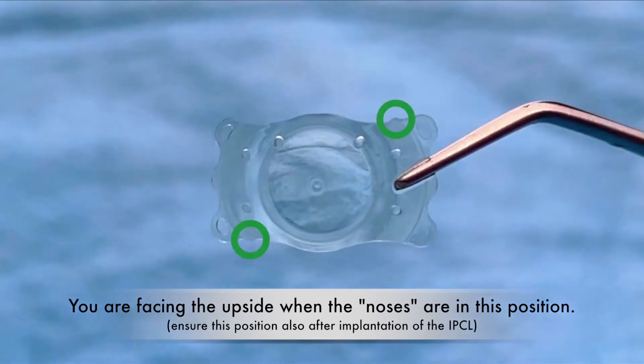You're facing the upside when the noses are in this position. Ensure this position also after implantation of the IPCL.